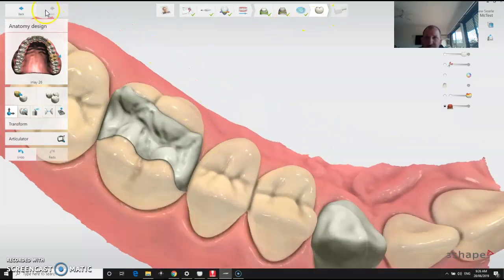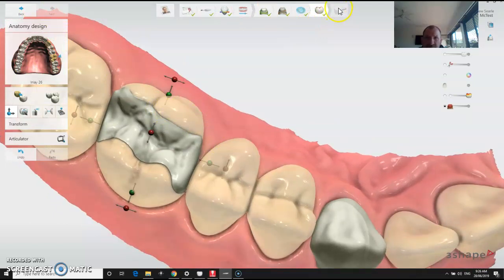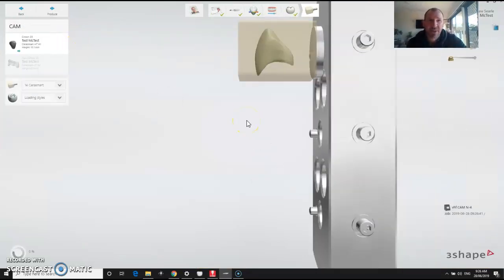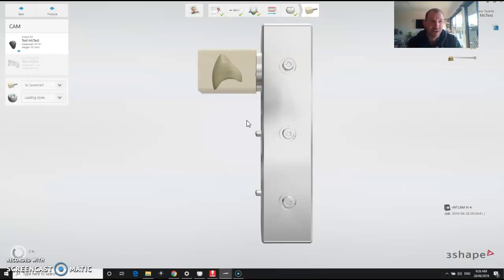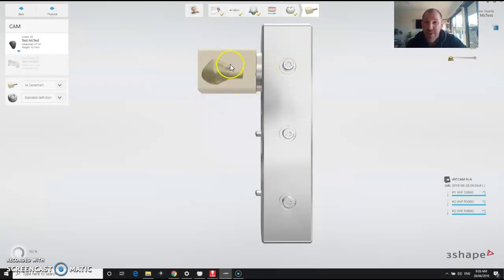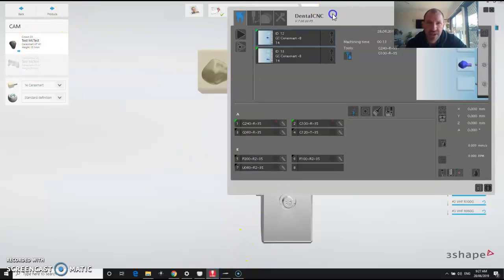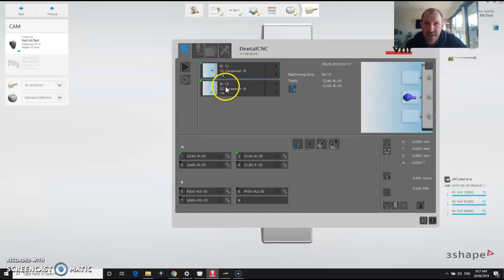They're both now designed so we can hit next. In reality, when you're doing the design you'll spend a little bit more time moving it around, checking contacts and whatnot. Then the software comes in here, you put the block into position and hit produce. Once you hit produce it will go into your CNC software — you can see these are the two I've put in: there's the inlay and there's the crown.